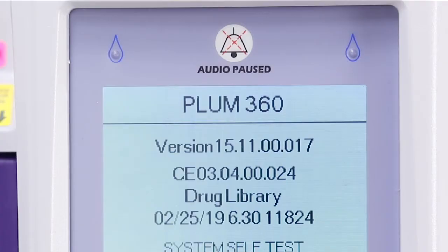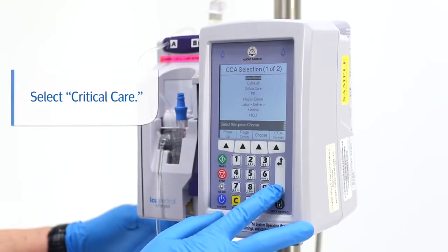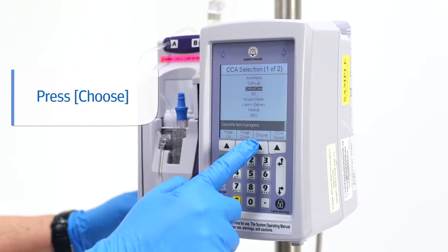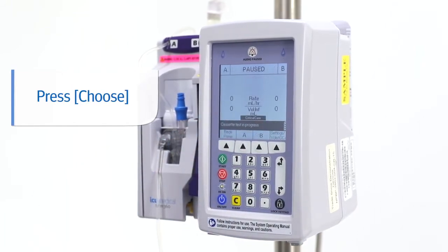Next, using the select key, highlight your desired clinical care area and press choose. For this example, we're choosing critical care.